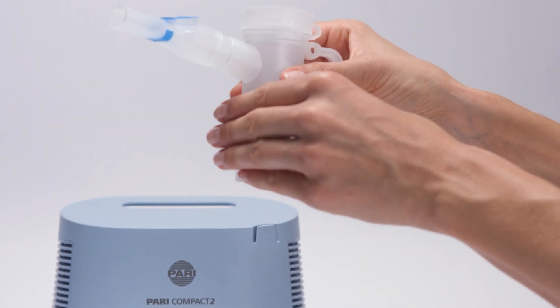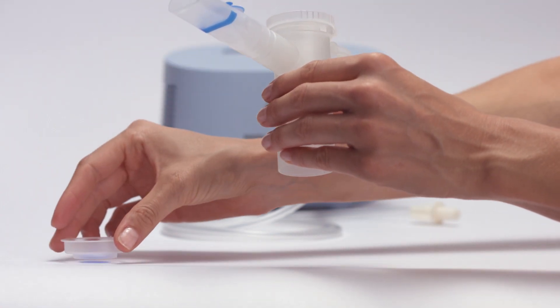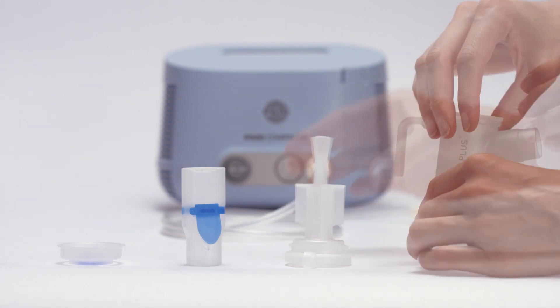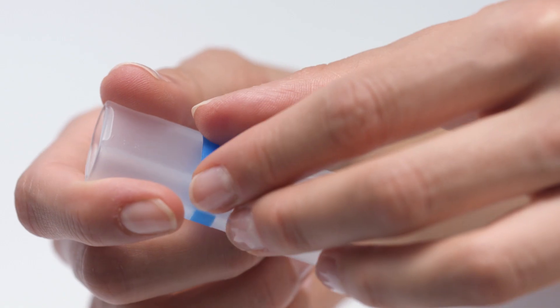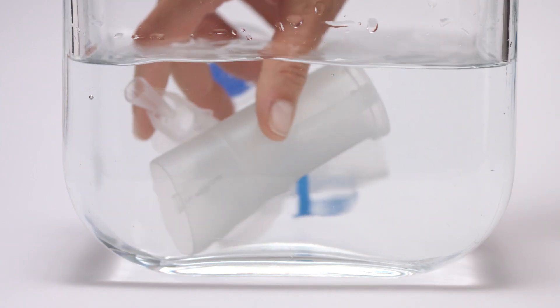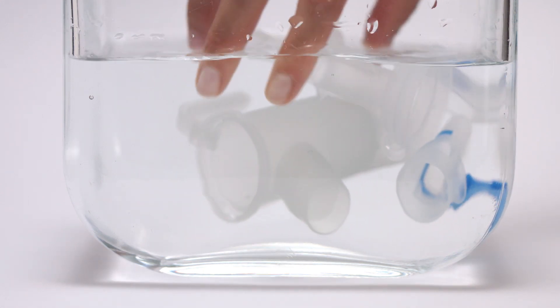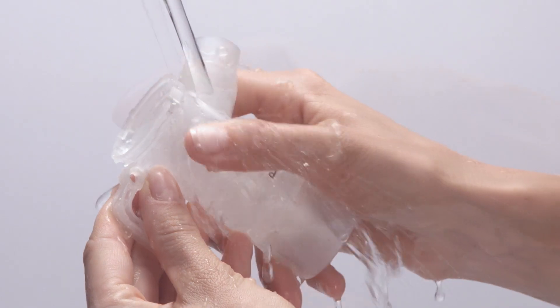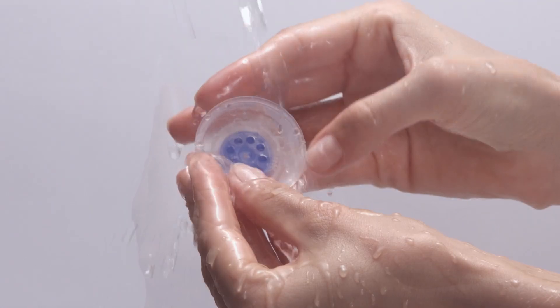Disassemble the nebulizer into its individual parts for cleaning and disinfection. Clean the nebulizer after each use. Wash all individual parts in warm water with dishwashing liquid, before rinsing thoroughly in running water.